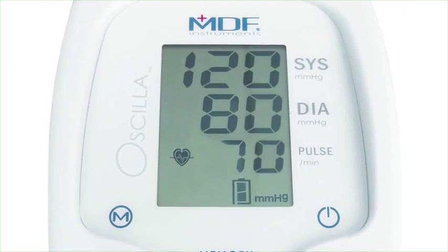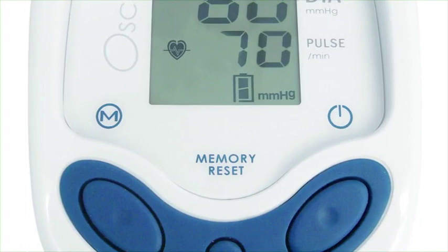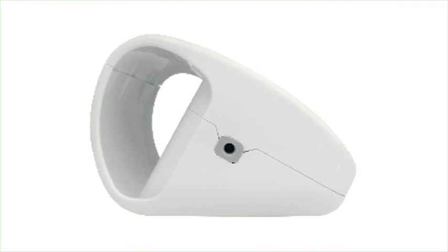Finally, in designing the housing, we added a functional storage compartment to hold the cuff in a way that really adds to the modern and sleek design while leaving a small footprint on your office desk.